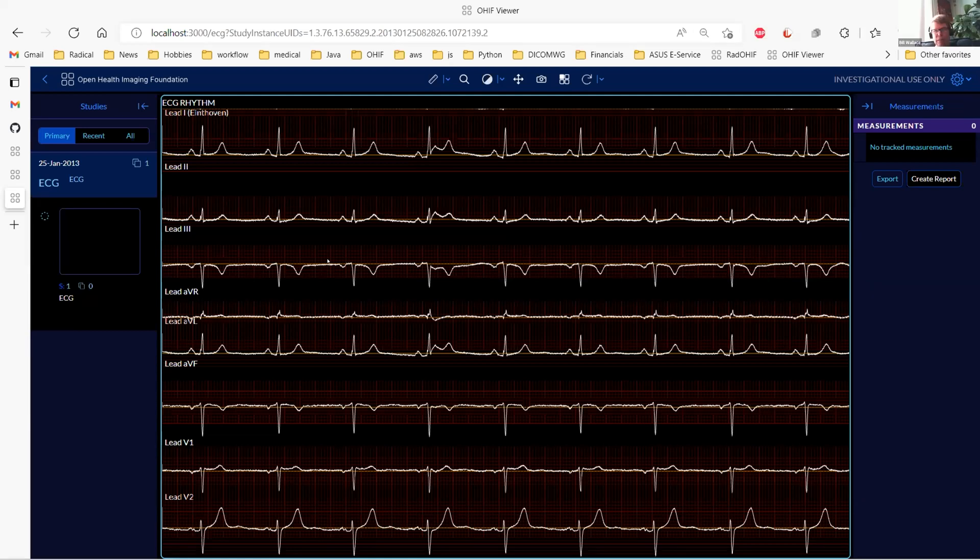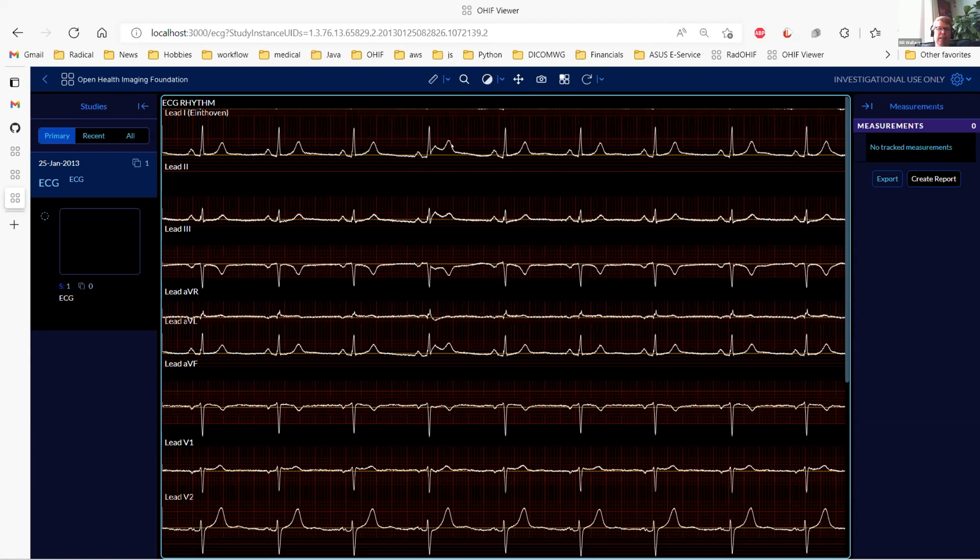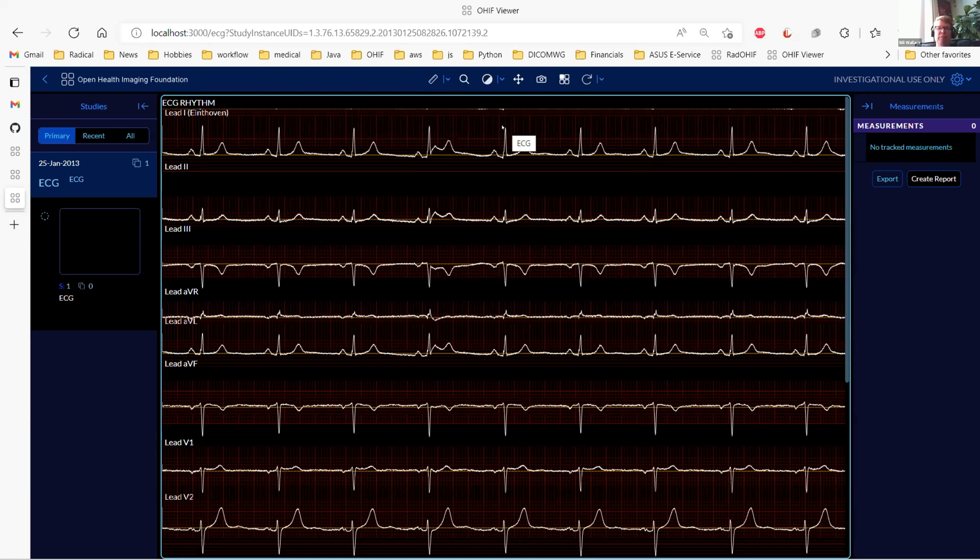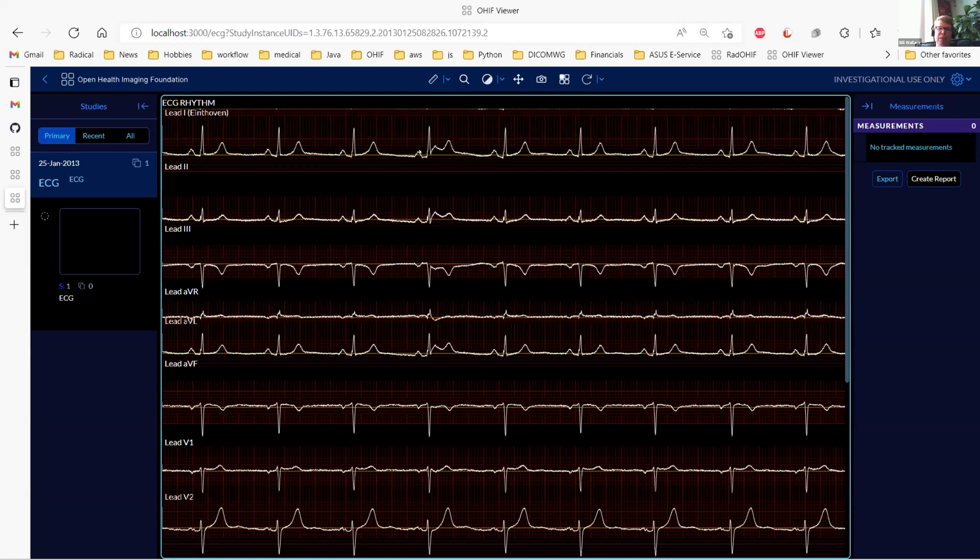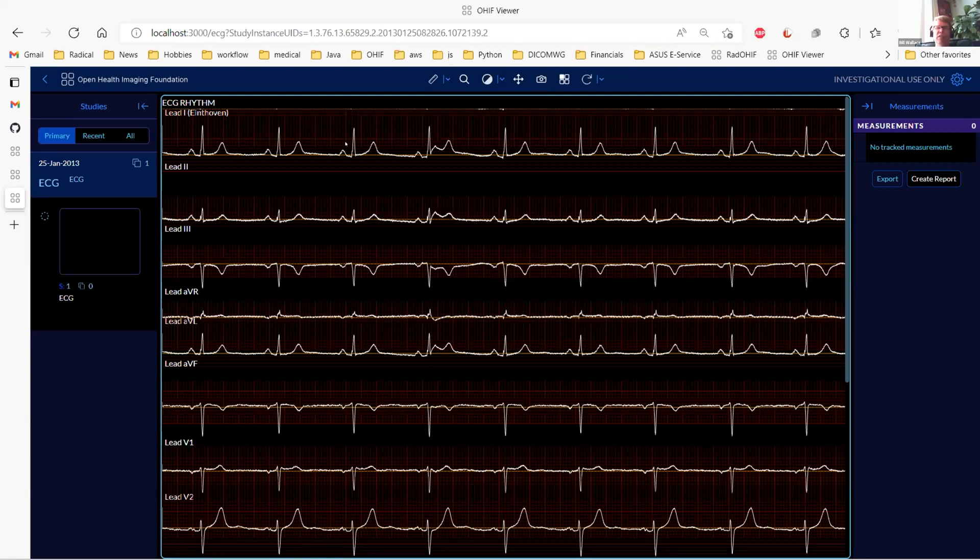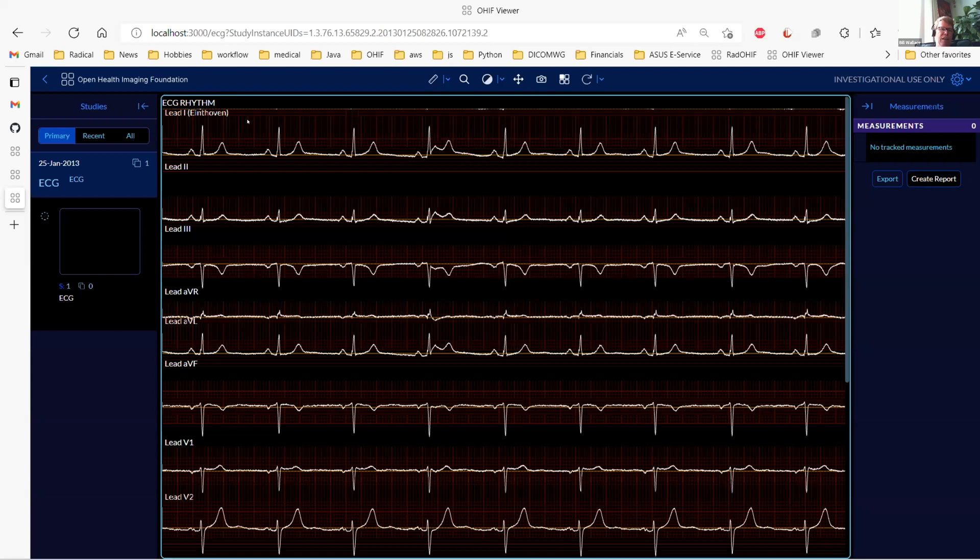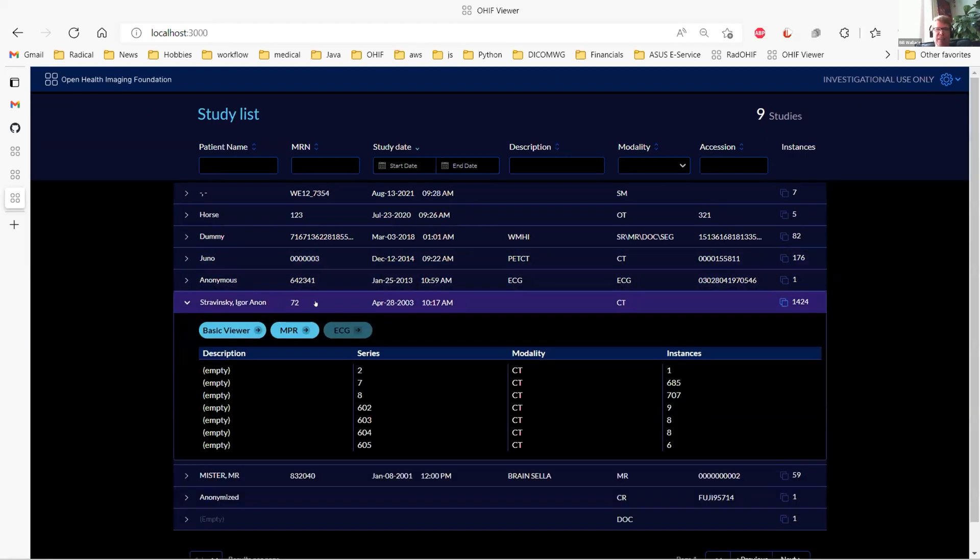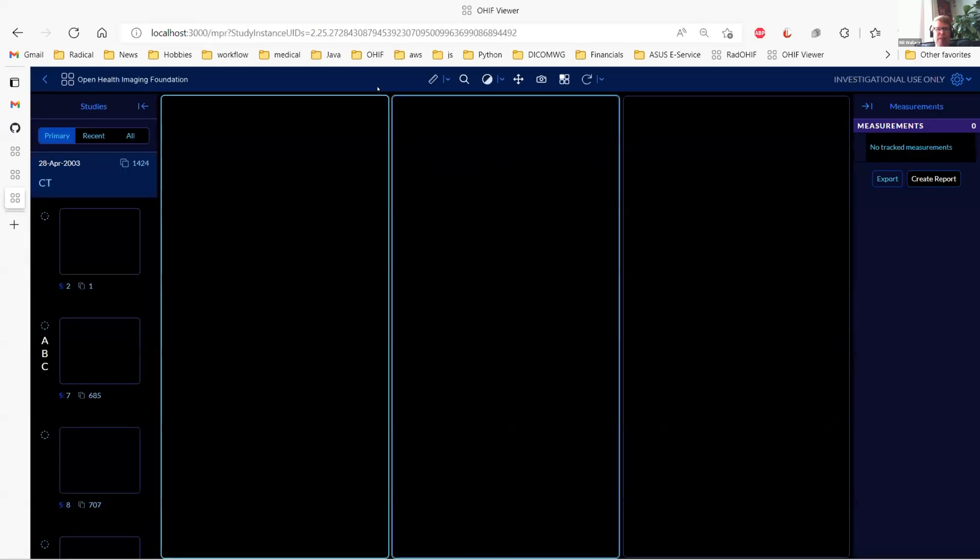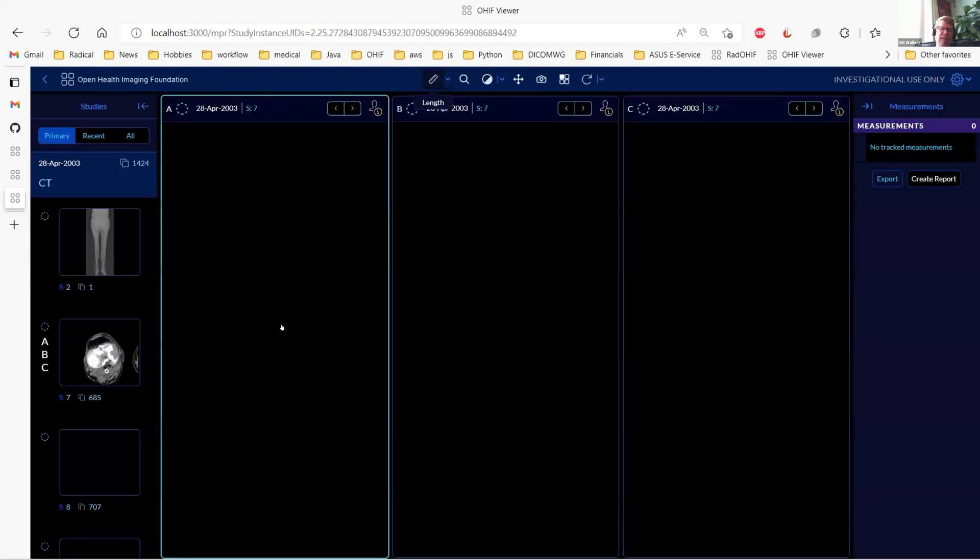They do want to be able to scroll, and then they also want the ability to click on points and get the reference lines between those and have it automatically show you the min and max values. I was thinking just having, you know, click on one and then drag to the other spot that you want, and it would automatically show you the min and max values and the time range. That's close to what they use. They also want the ability to add comments. There's all of this ability to add a structured report in for everything else, so I was thinking it would be worthwhile having that.